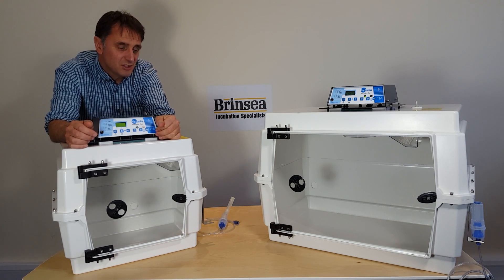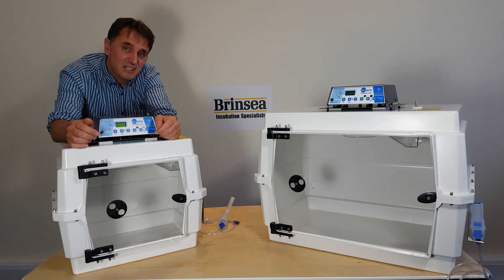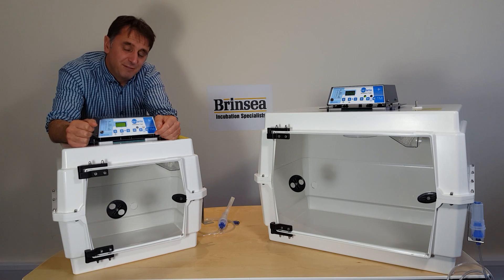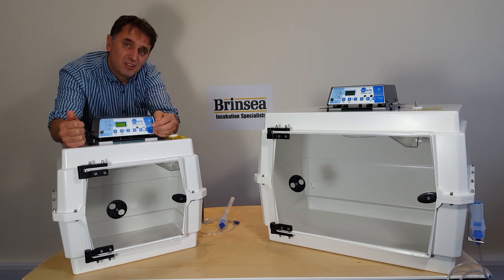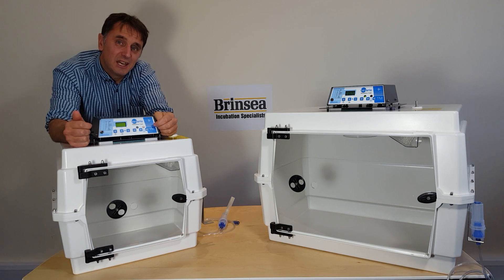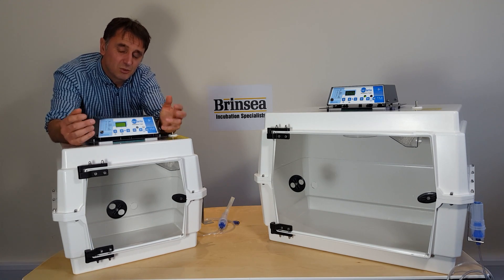The unit has no tight corners inside the chamber which makes it easy to clean, and it has a gloss finish which also makes it easy for cleaning. The fan guard inside can be easily detached so that you can get access to clean the fan, and the heater inside is encased in a metal tube also to assist with cleaning.